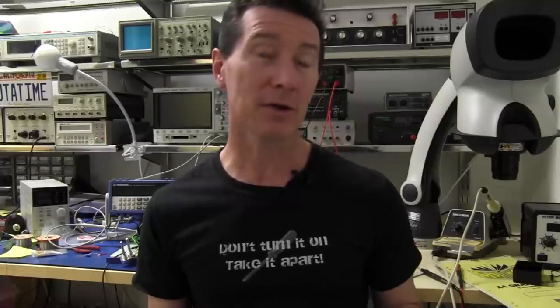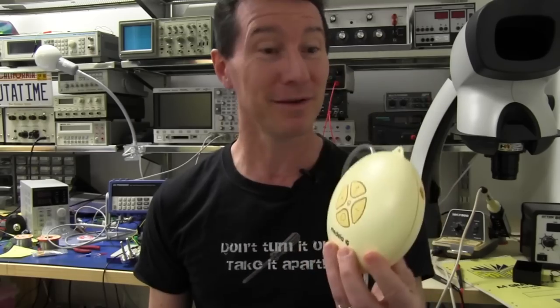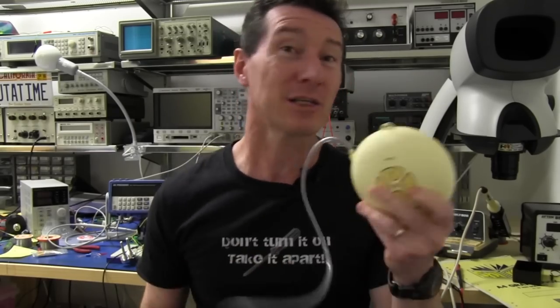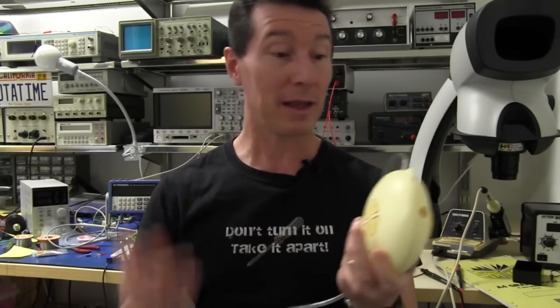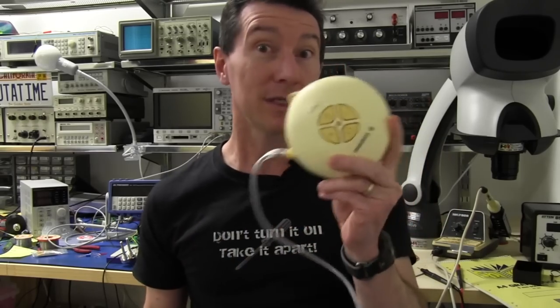Hi, welcome to Teardown Tuesday. I was going to do something entirely different today, but at the last minute something turned up for repair here in the lab, and I thought, may as well do a teardown as well, because I don't think we've had a Swiss or a teardown of something made in Switzerland before. So hi to all my Swiss viewers. And I like to keep abreast of different technologies, so we've got a breast pump. It's a Medela Swing breast pump. Yes, cue the jokes, but I don't expect it to be terribly exciting. Inside there'll be a motor with a microcontroller to control it, battery powered, and that's about it. But I thought we'd see what's inside this Swiss made breast pump and see if we can fix it.